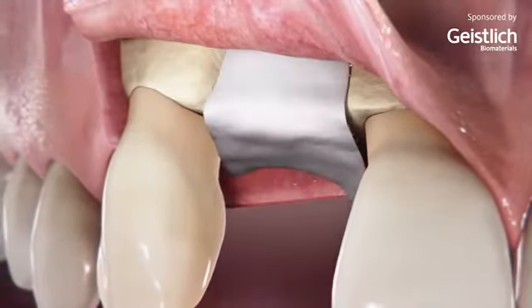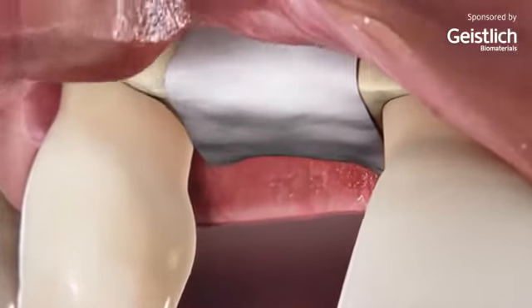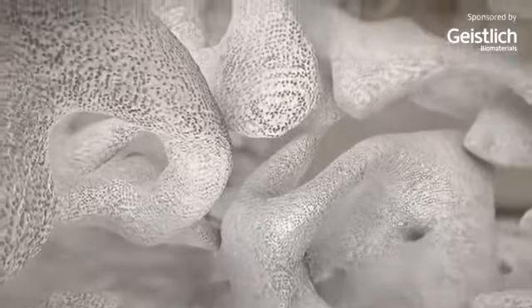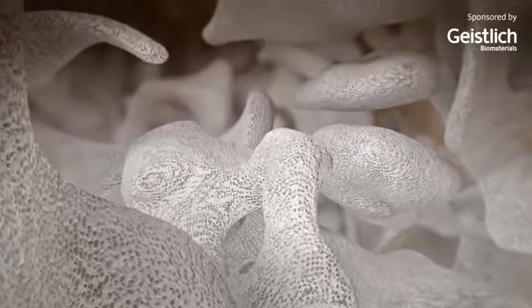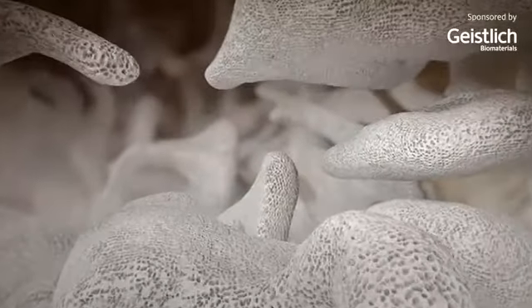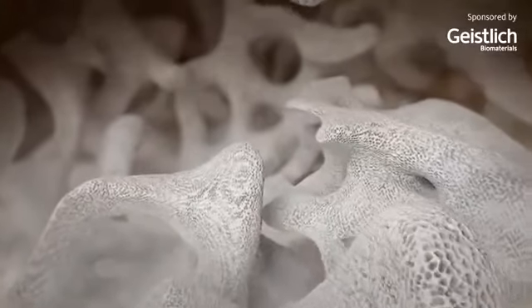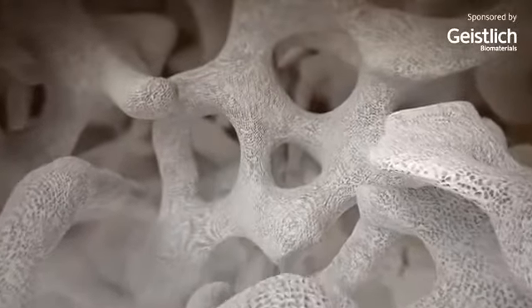An applied collagen membrane serves both mechanical and biological purposes. Mechanically, the membrane improves the stability of the applied bone chips and deproteinized bovine bone mineral particles in the augmented area. Biologically, the membrane provides a secluded space and prevents the ingrowth of soft tissue from the overlying mucosa. Biofunctional collagen membranes are a key element for guided bone regeneration and ensure uneventful wound healing.